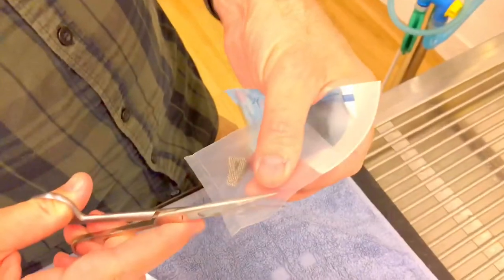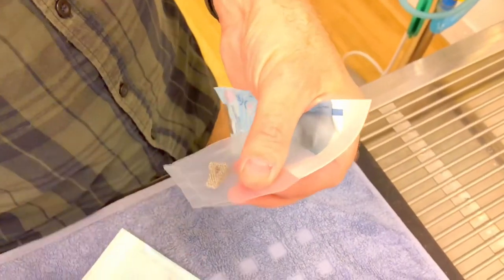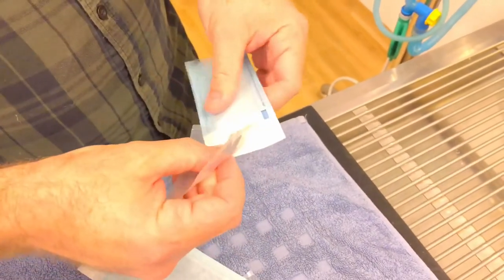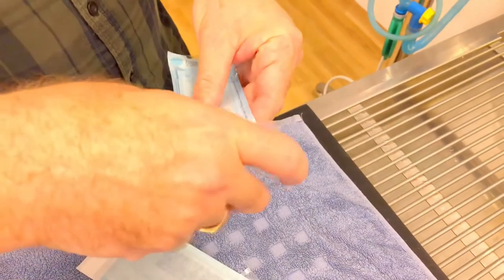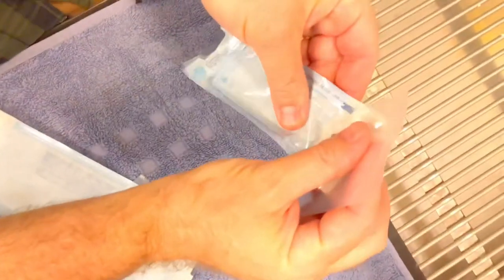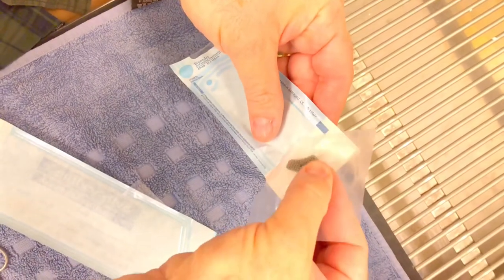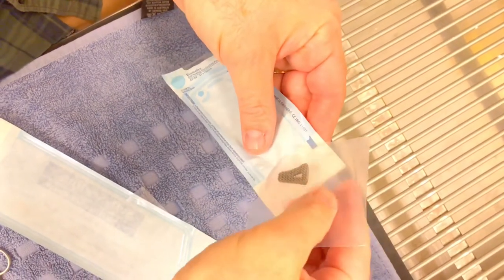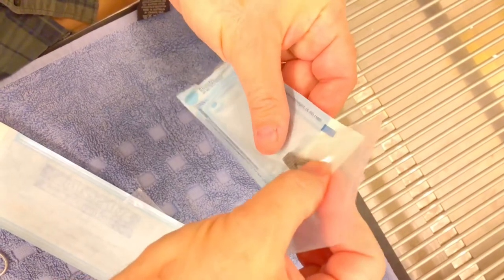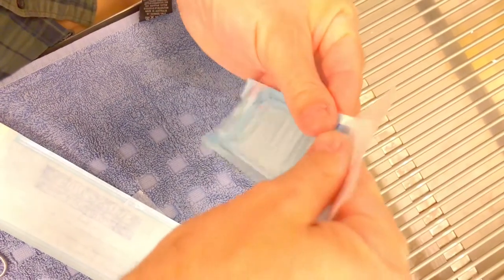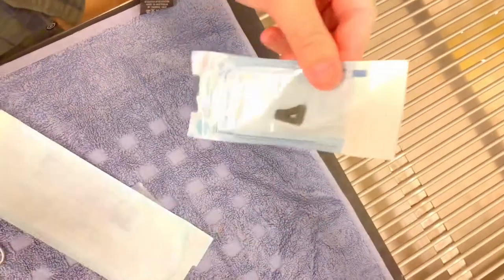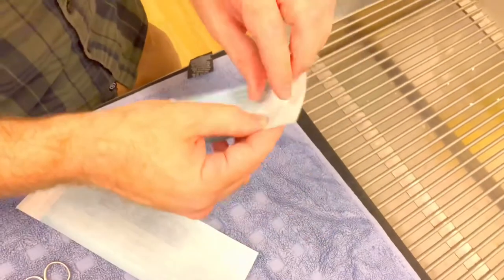Let's cut the corner and shuffle these around. We've got it into the bag and we'll seal this bag.